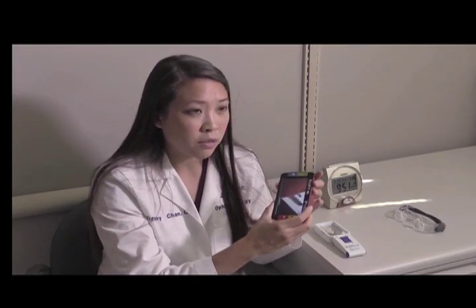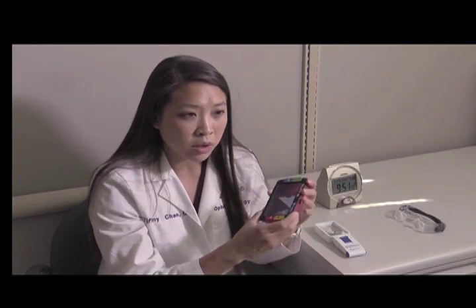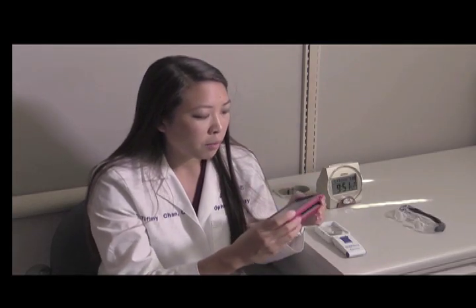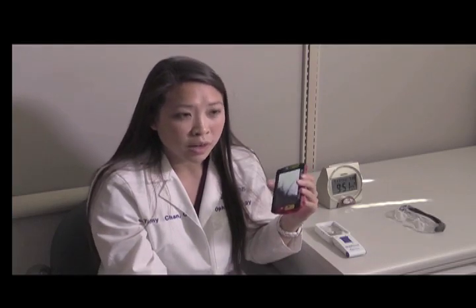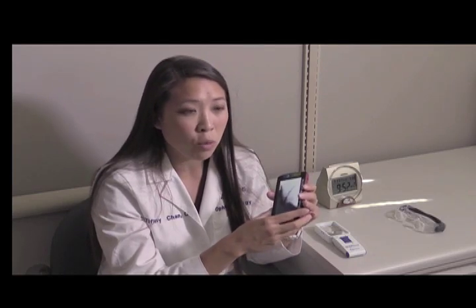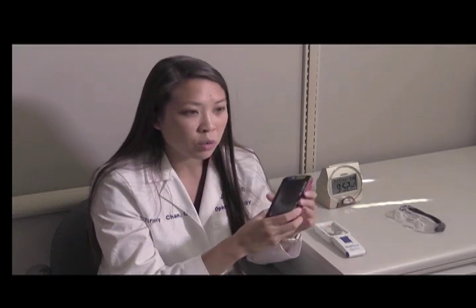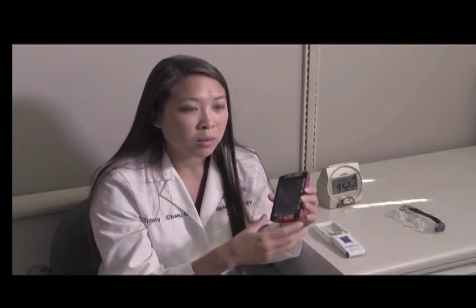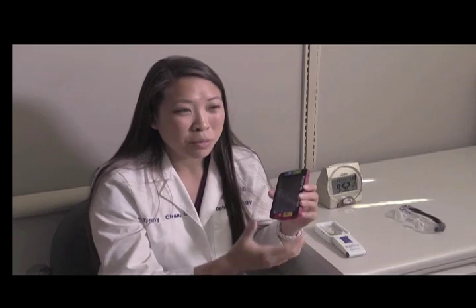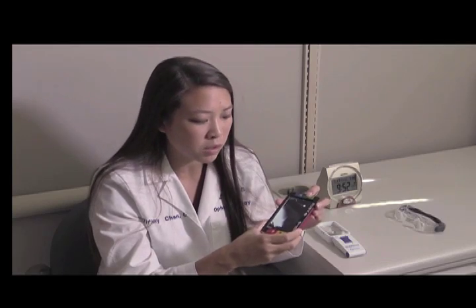Another feature of this magnifier is contrast enhancement. Contrast, or the boldness of print, is very important for being able to read, especially if the print is very faint. By pressing this button, we can enhance the contrast or make that print more bold and dark. By pressing the button again, I can actually reverse the polarity of the contrast, so now the print is white with a black background rather than black print on a white background.